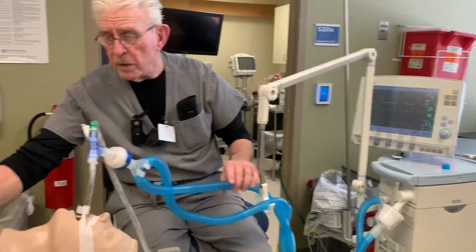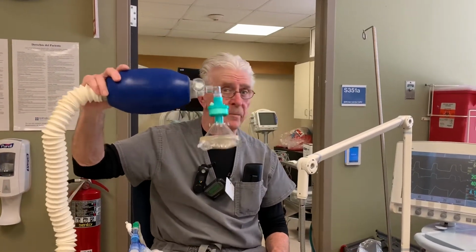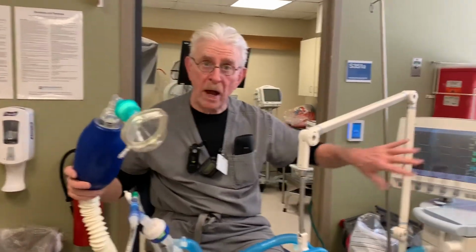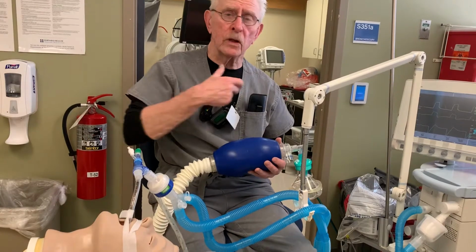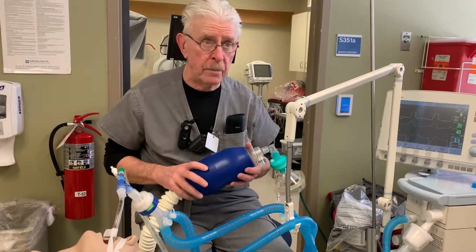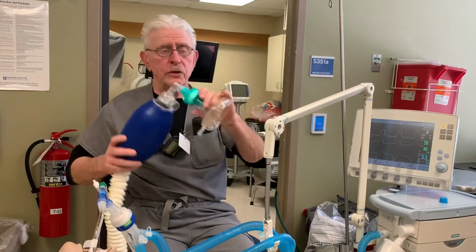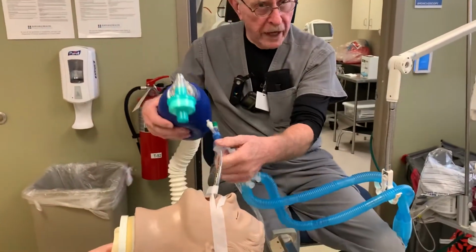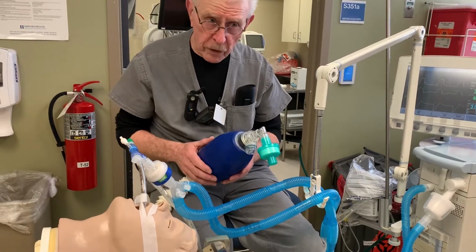But no discussion is complete about mechanical ventilation without mentioning what your backup ventilation device is. For those situations where you might not understand what is wrong, but you know something's not right with the ventilator, meaning you might be hearing air escaping from the mouth, or you're listening to breath sounds and not hearing something, and you're questioning this device and the purpose of its alarm, what you need to do is take the ventilator off, connect up the bag to the tube, and bag the patient until you page the respiratory staff to come and see exactly what's wrong.